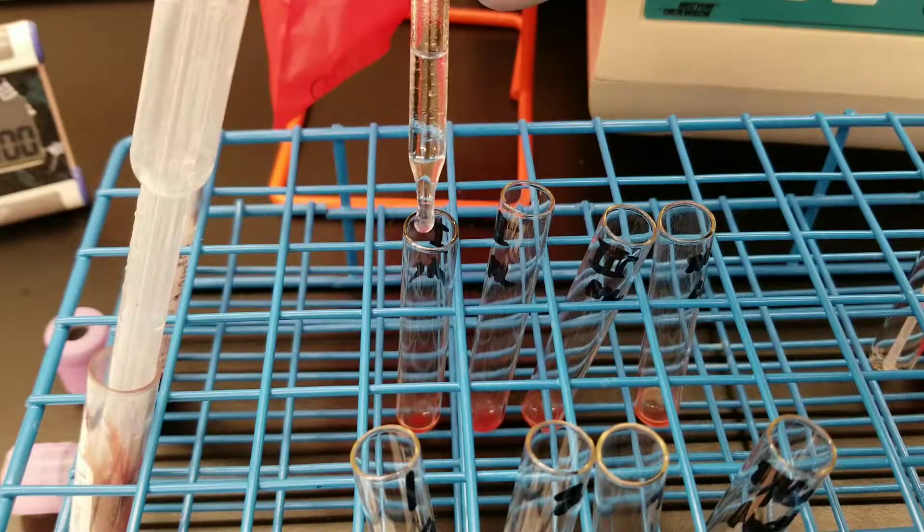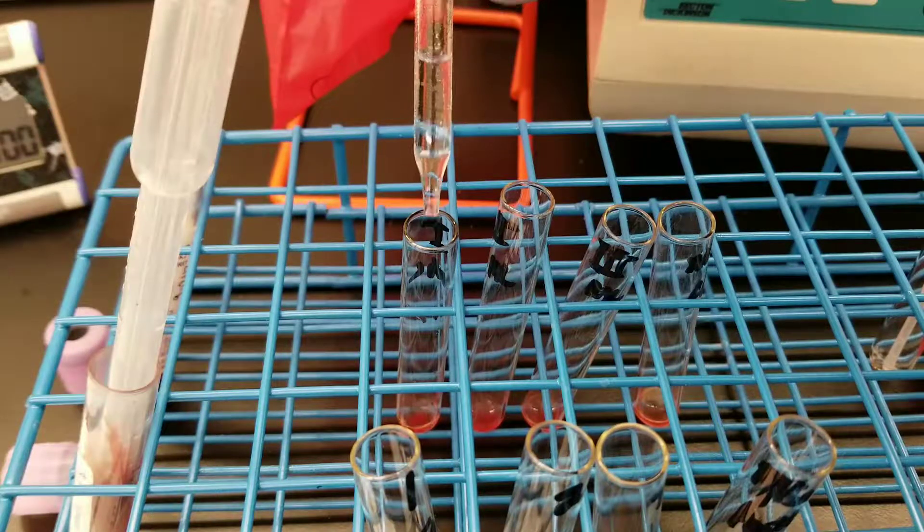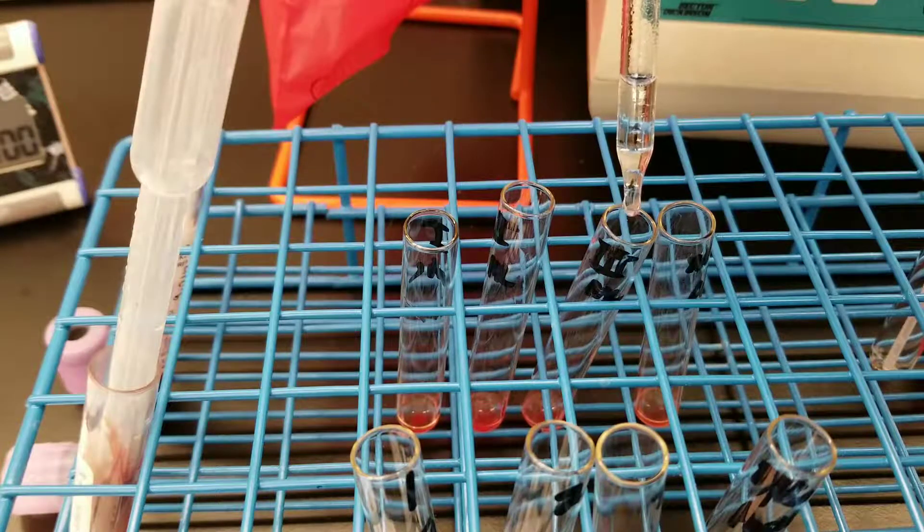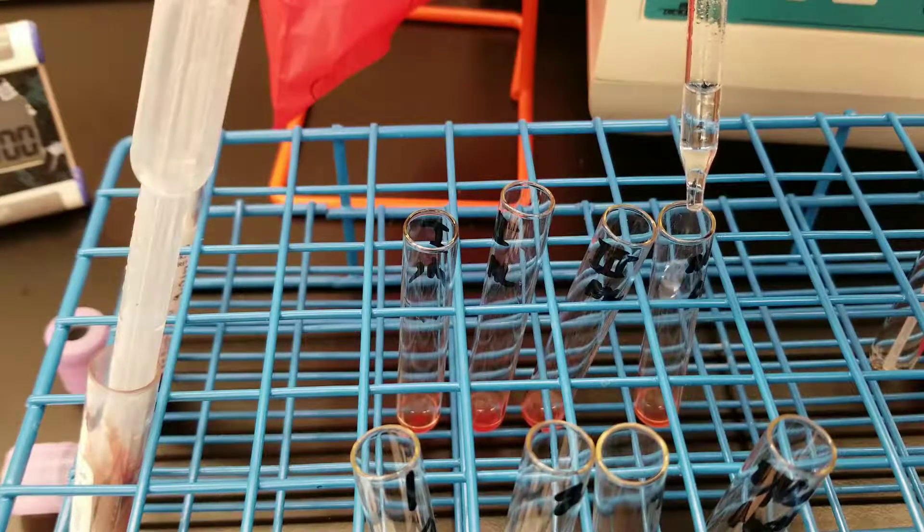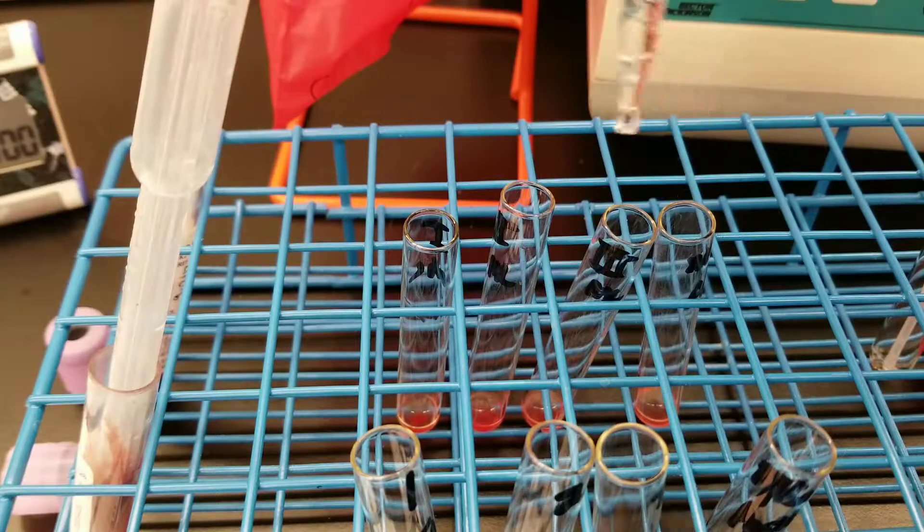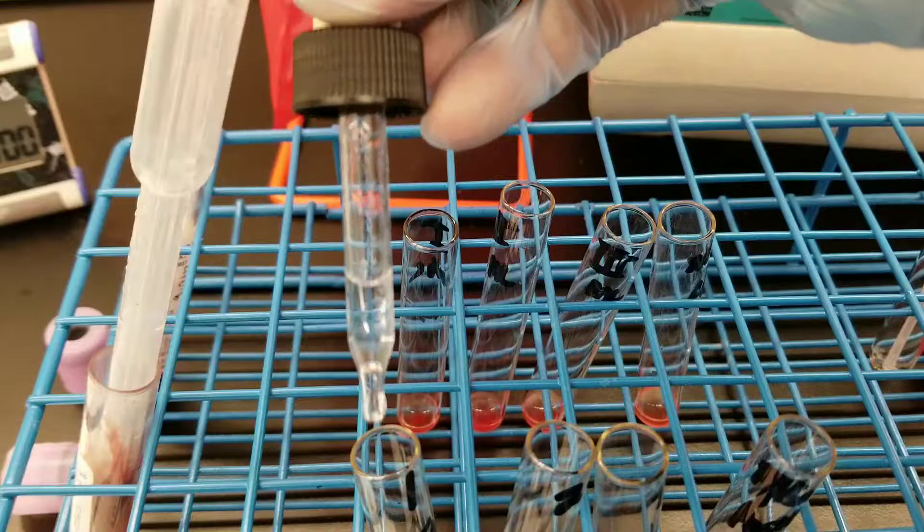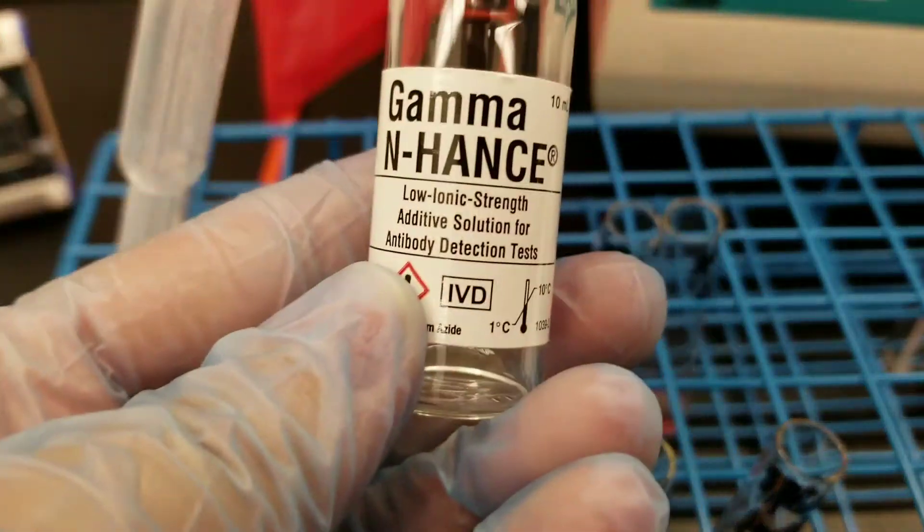Before I do my 37 degree incubation for my antibody screen, I am adding two drops of LIS, which is also known as Gamma Enhance.